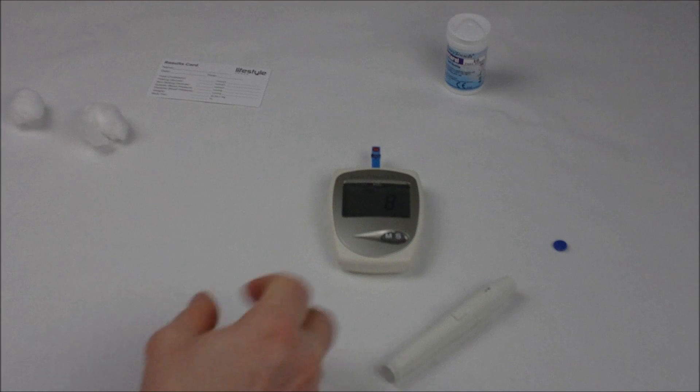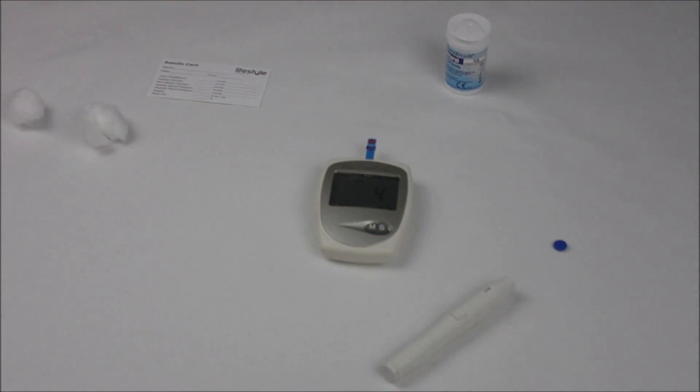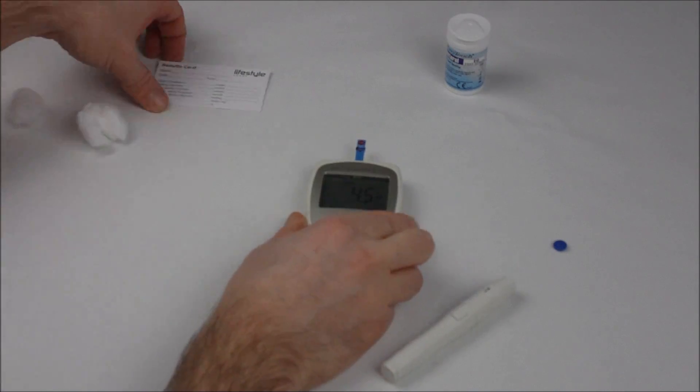You join us with about 10 seconds to spare on my cholesterol countdown. Once you get your cholesterol measurement, mine's showing here as 4.5, write that on your results card.